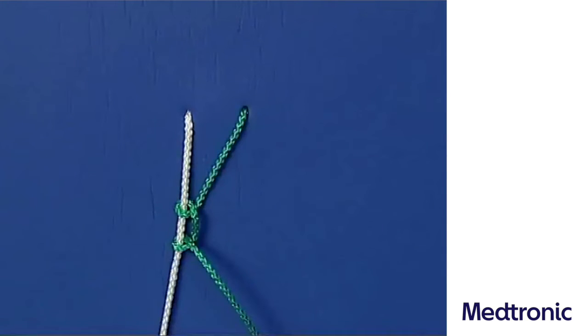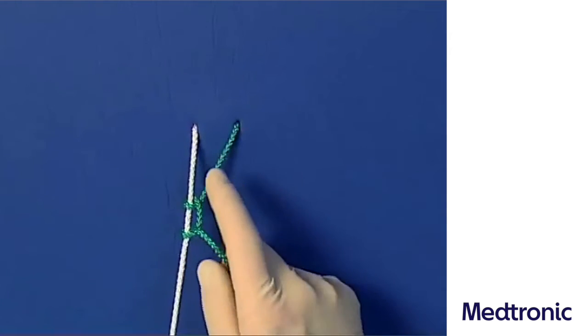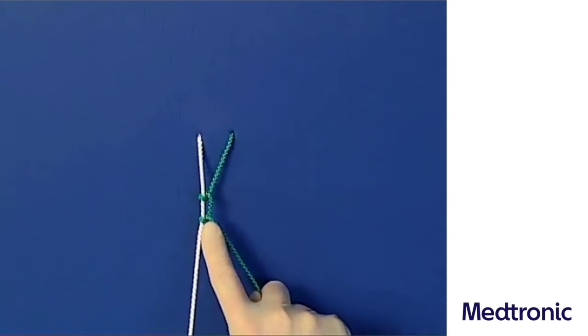The Slipknot. When tying deep, the loop is pulled tight in the axis of the knot by positioning with the index finger.